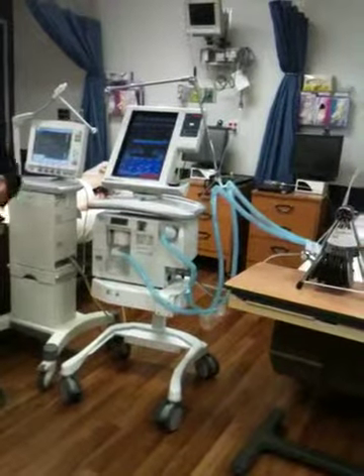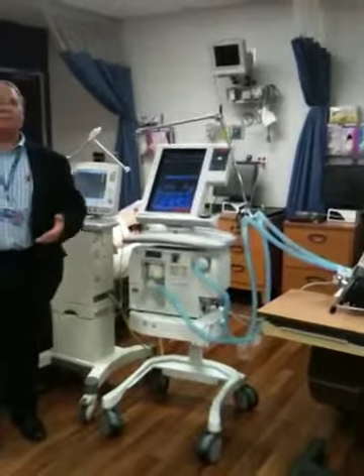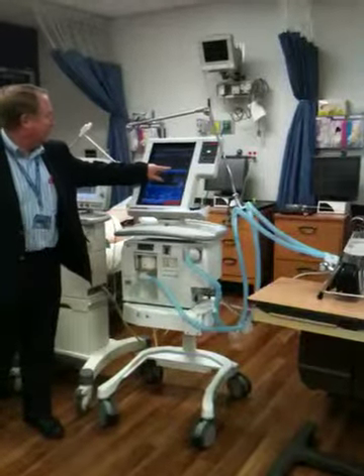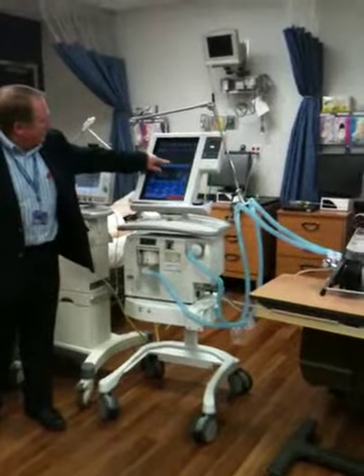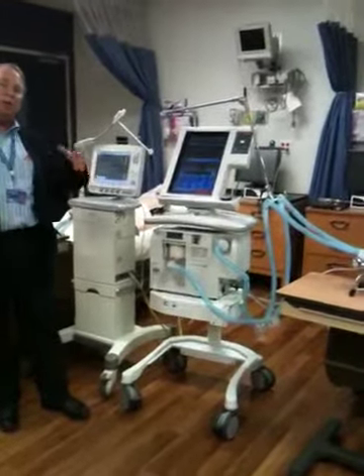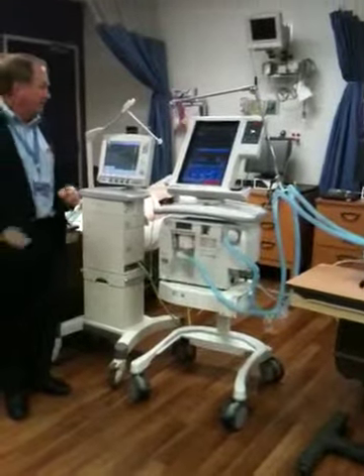When we do pulmonary functions, that's what we're going to be doing. We're measuring each other's peak flows, and peak flow is peak right here at the dot. And then it should be a nice gradual drop down. If not, then I'm showing that the airways are closing as we're trying to exhale.